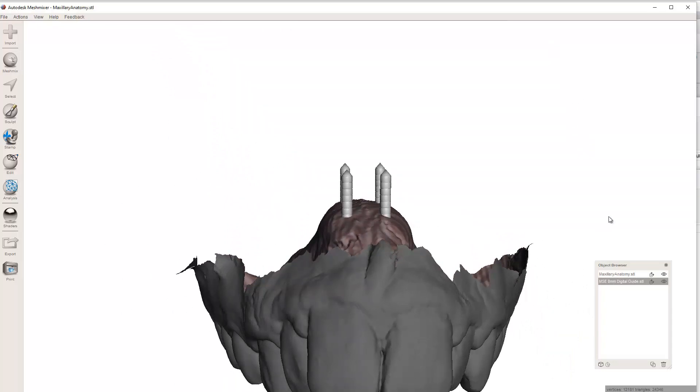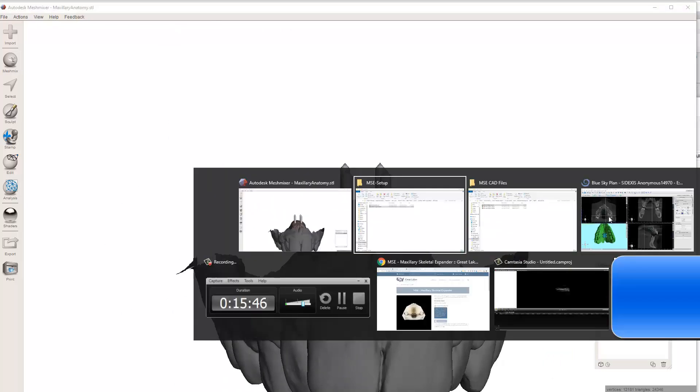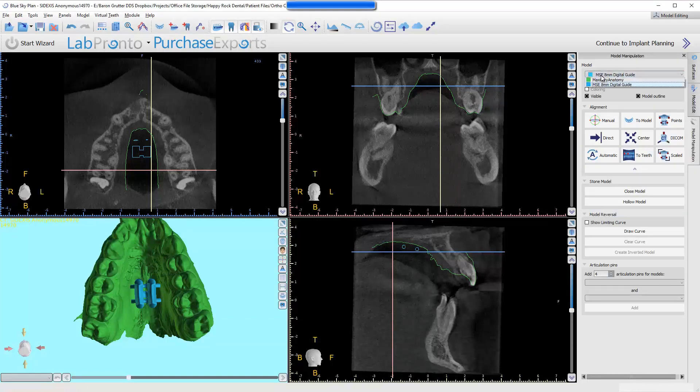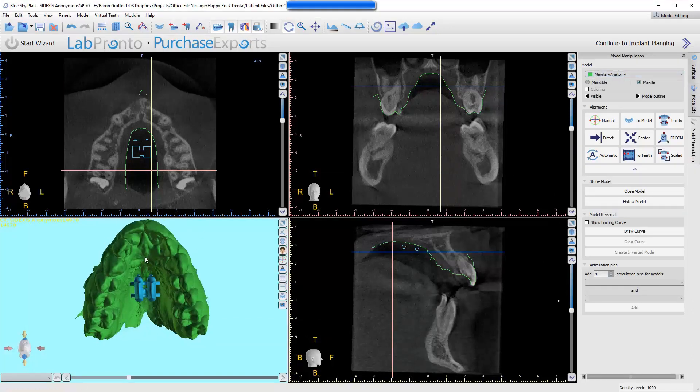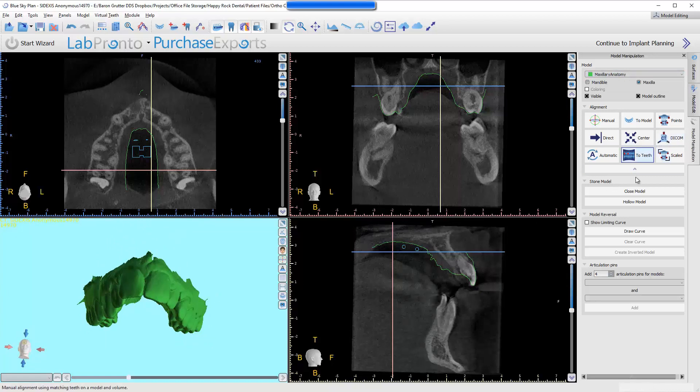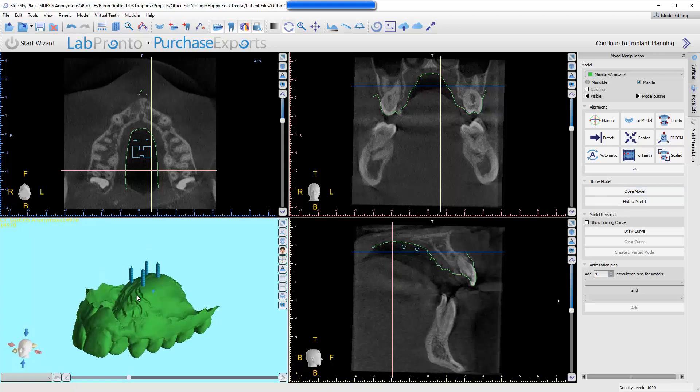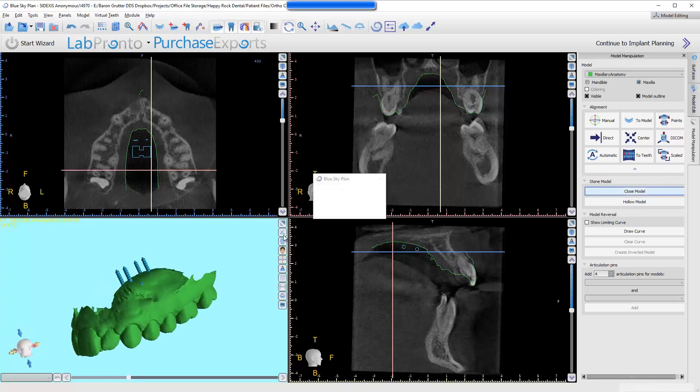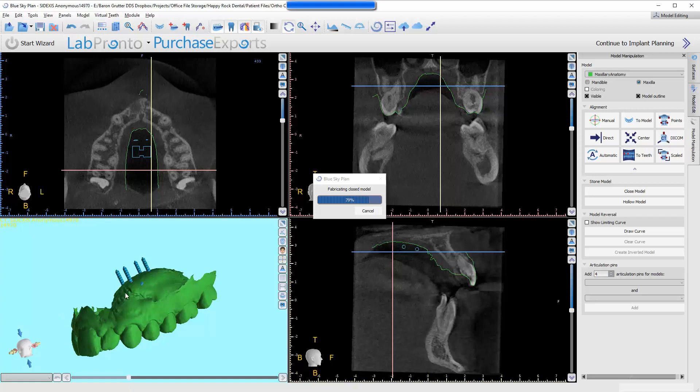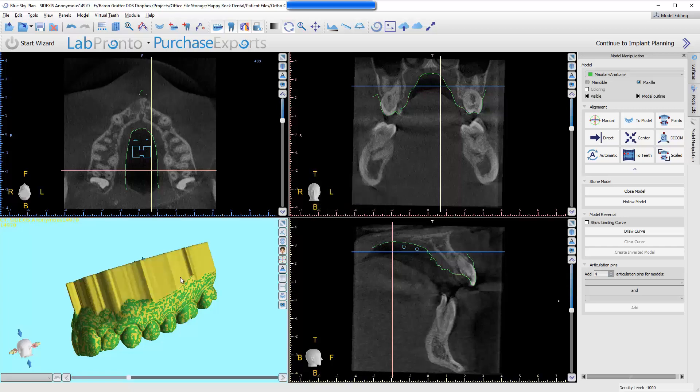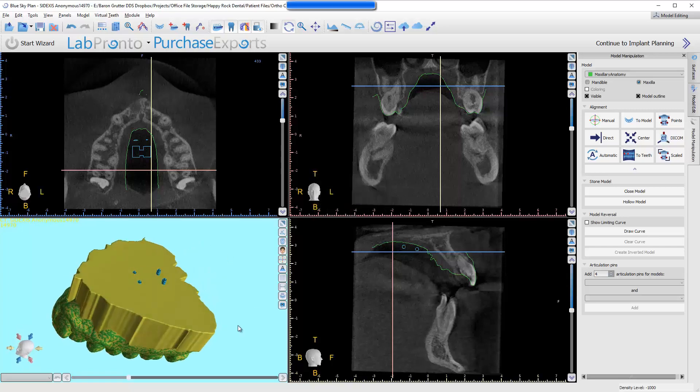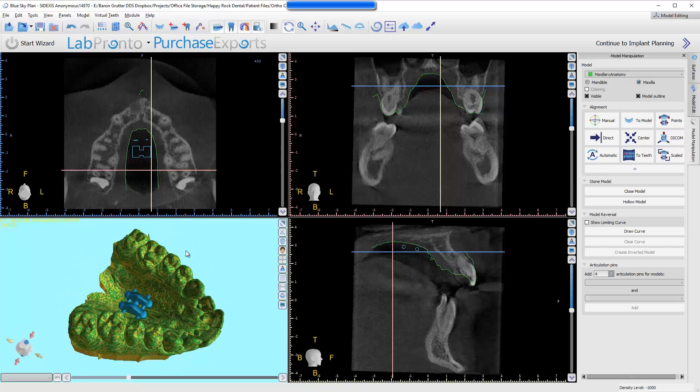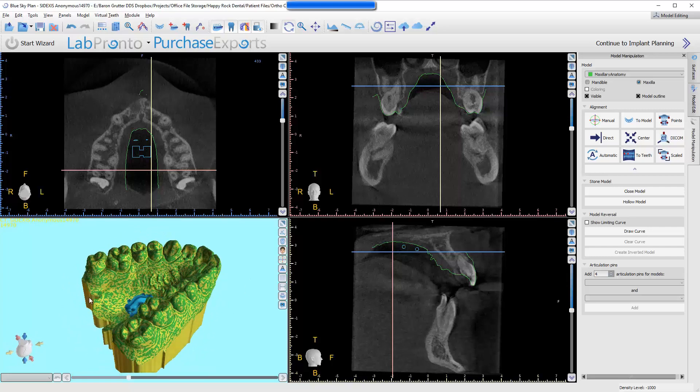I'll leave it to them. There's different ways to base. I will show you right quick, in case you're not familiar with the software. If I click up here and change it to the Maxillary Anatomy model, now I'm manipulating this model again. I can actually click right here to close model. Now, the problem is that my default is going to be a short model, because I don't need the palate in most of my situations when I'm closing the model. So, the model height will most likely clip off the palate, and we'll see what it looks like. But, if that happens, it didn't. Perfect. Now, this model would have been perfectly fine to close.